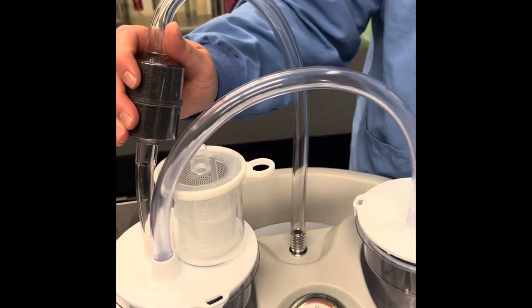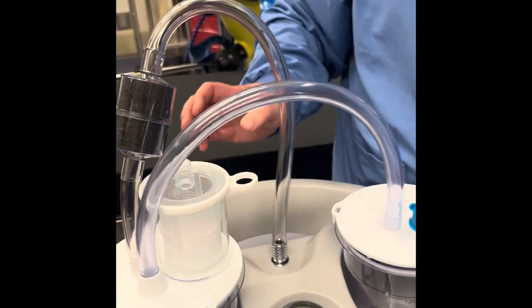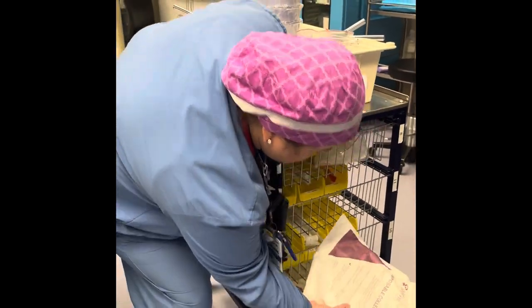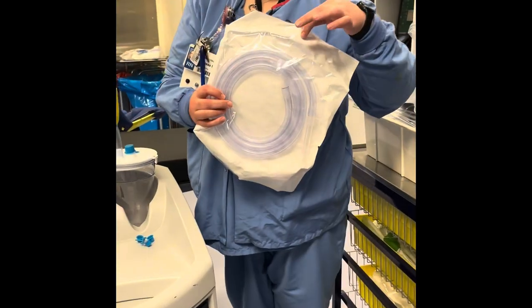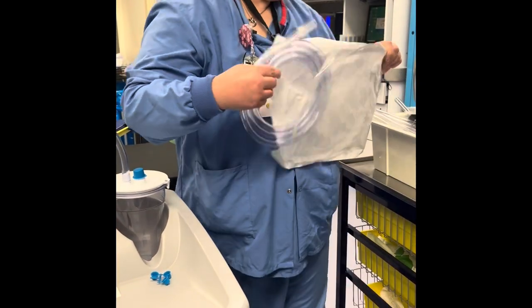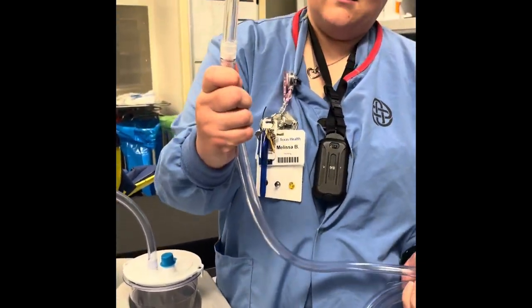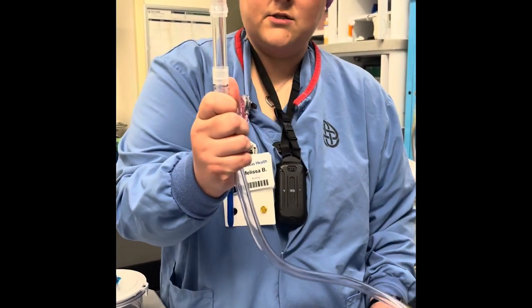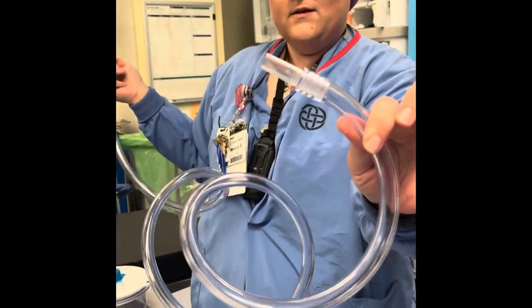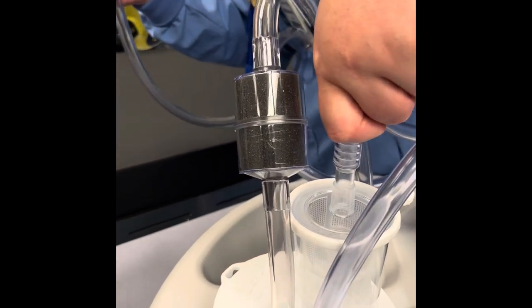Then you need the vacuum connected to the one that has the patient's specimen container connected to it. Next we will open up the pack here to show you where this connects to. This is the end that the curettes will connect to — this will be the sterile end that will stay on the sterile field. And this end is the end that will connect to the specimen container here, and it just clips in just like so.